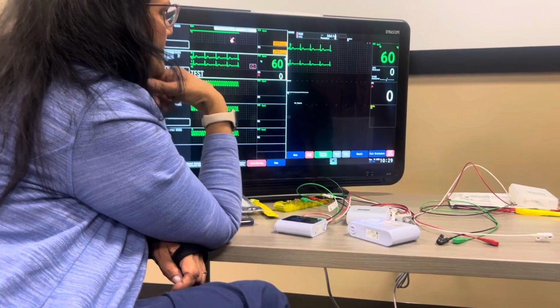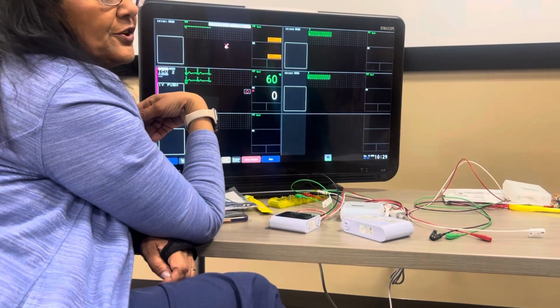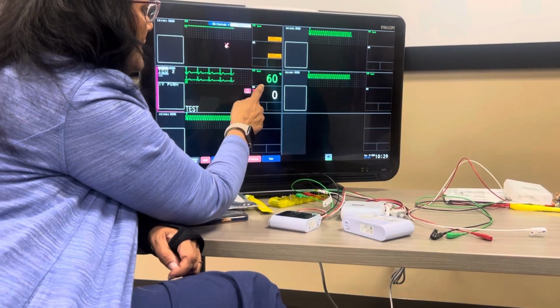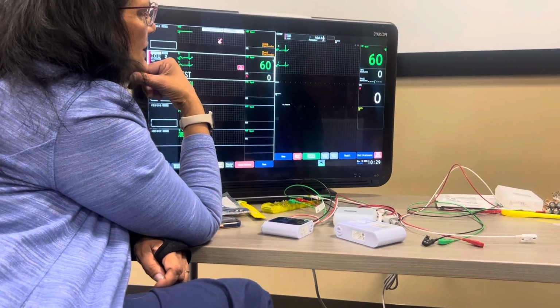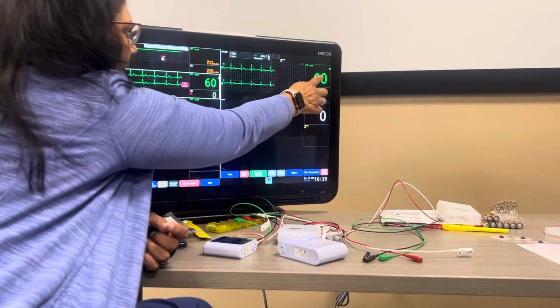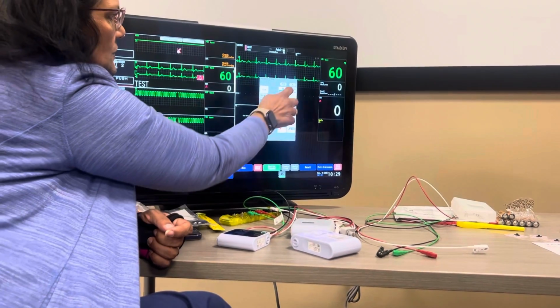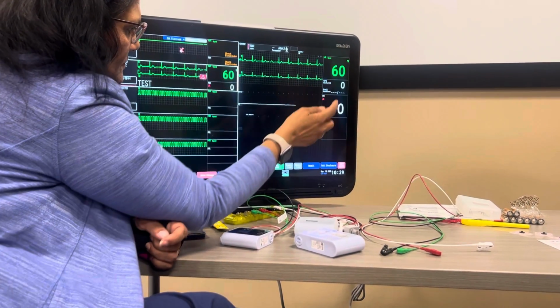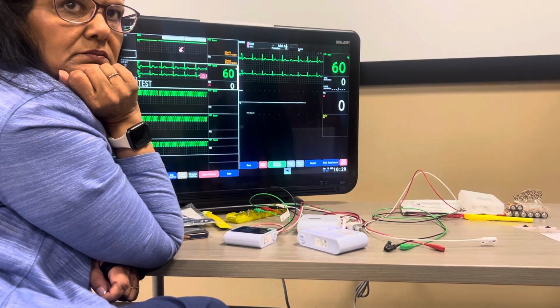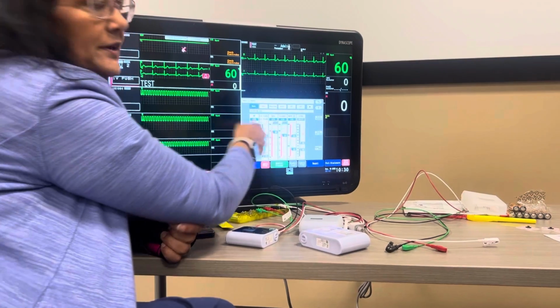So remember, always choose your patient first, because it's a specific patient. Now you can hold the heart rate on the other screen, and then you can go here and increase and decrease. And then can't you see all the vitals through alarm setup on the bottom right? Yes, that's another way to do it. Okay.